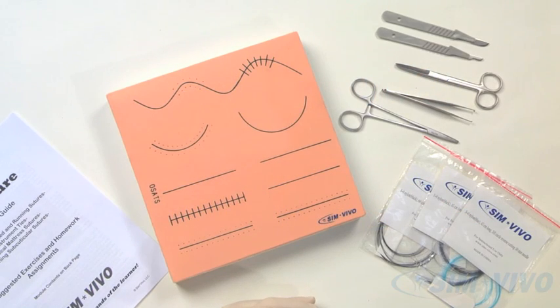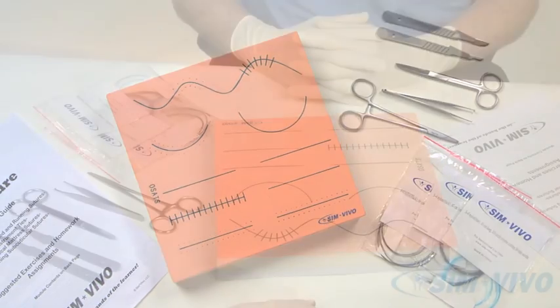When you open the SimSuture module, you will find all the materials necessary to learn suturing skills. Let's take a look at the contents.